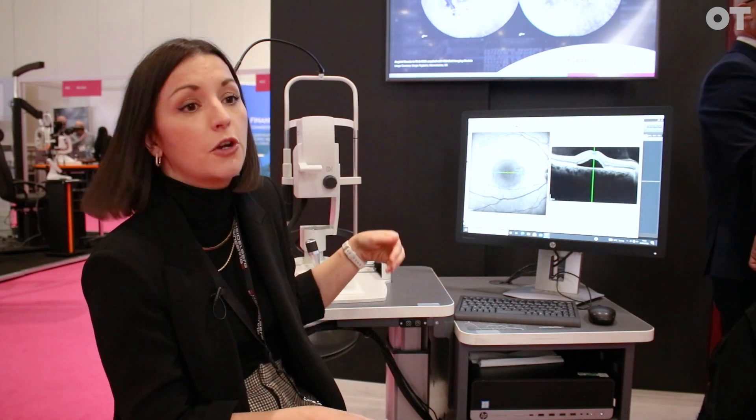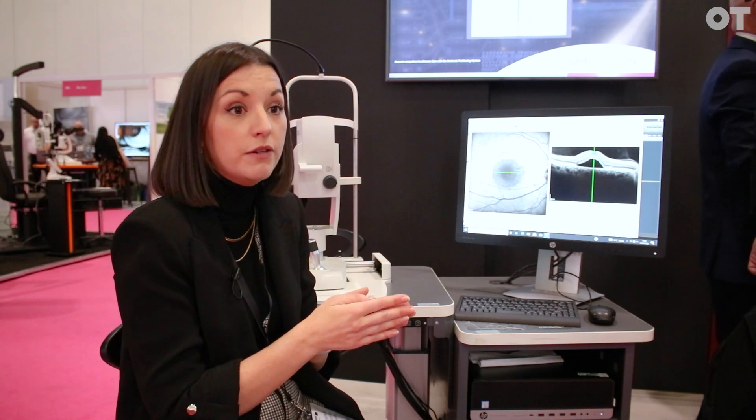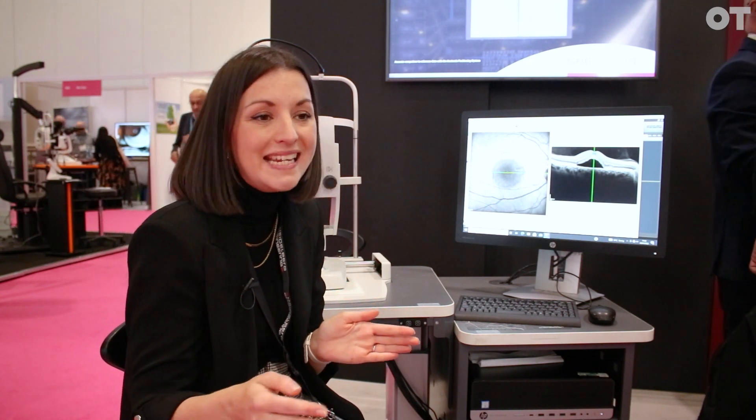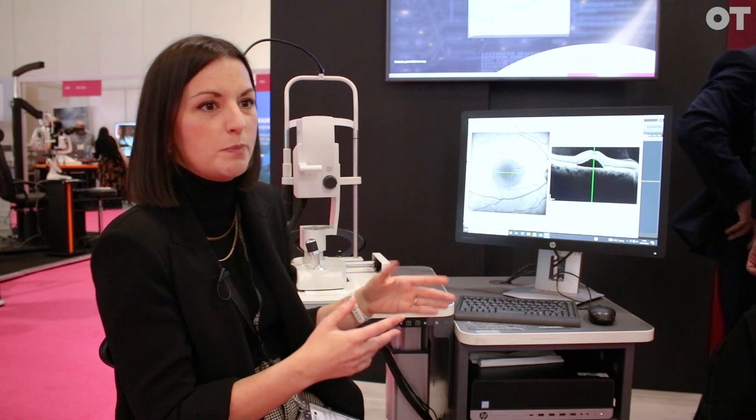The other thing it enables us to do is set an image as a reference for progression purposes. This is great — when the patient revisits for the second, third, or fourth time, we're able to rescan back to the same location to within one to two microns. This means our progression accuracy and repeatability is really highly accurate, so we can detect real change over time with more clinical confidence, as opposed to variability caused by device tolerance between visits.